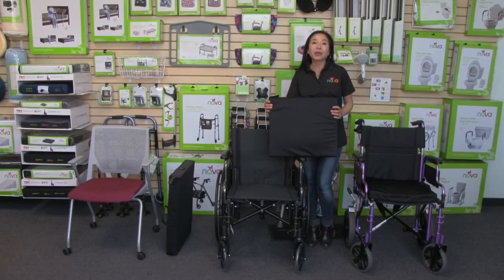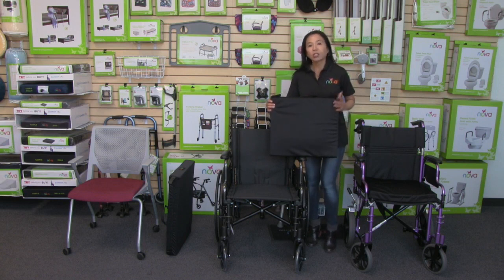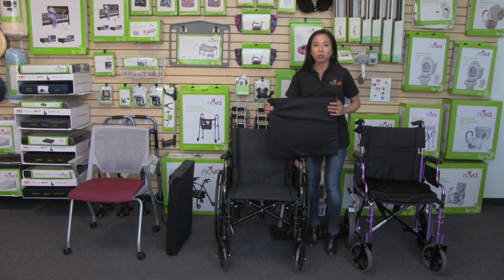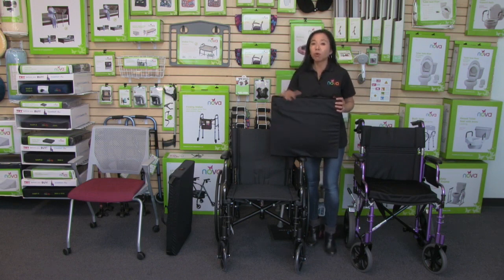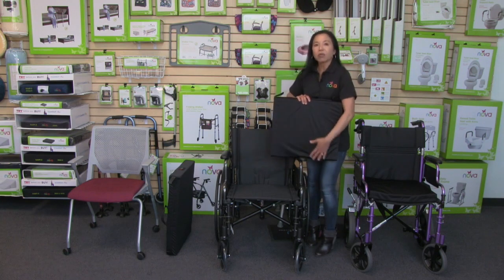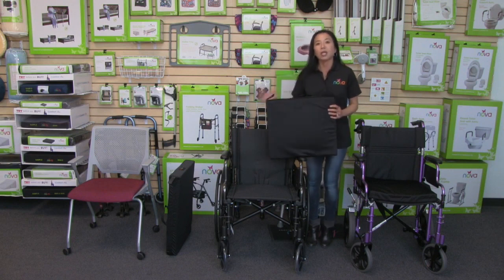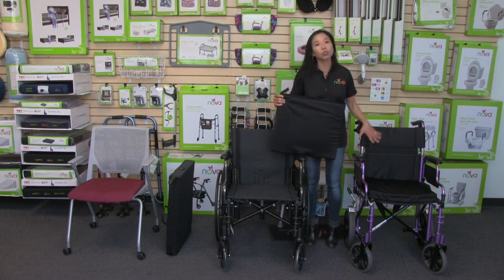This video is about the Nova gel foam wheelchair cushions. This gel-foam combination is ideal for longer-term use — the foam with the gel bladder inside is more supportive, which aids in posture and balance. It's also more pliable, which is great for weight distribution and aids in preventing pressure sores.